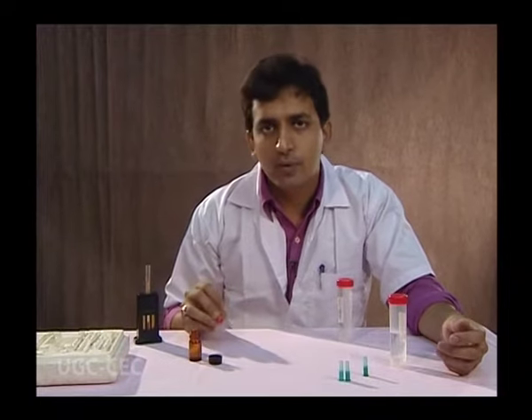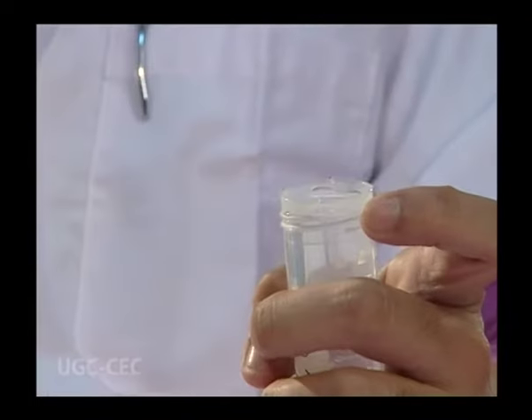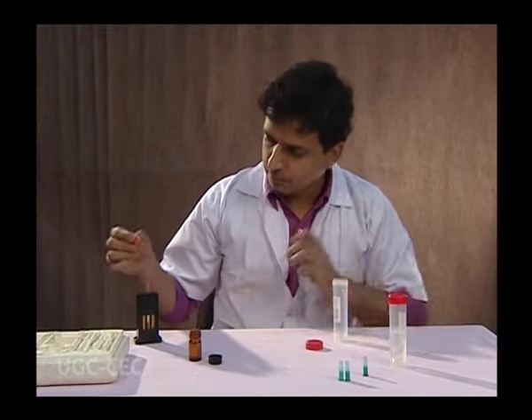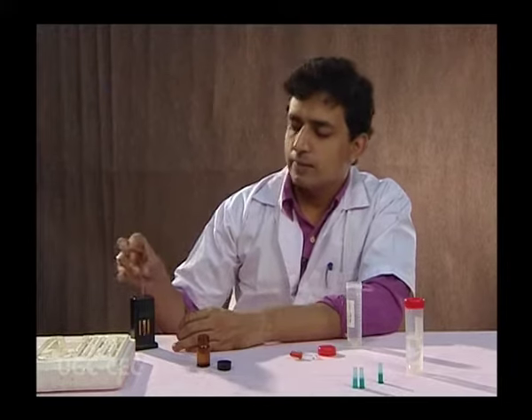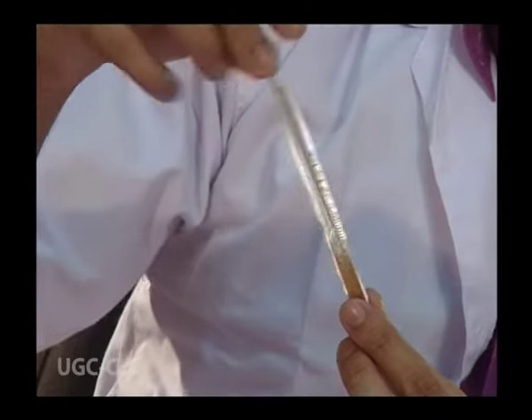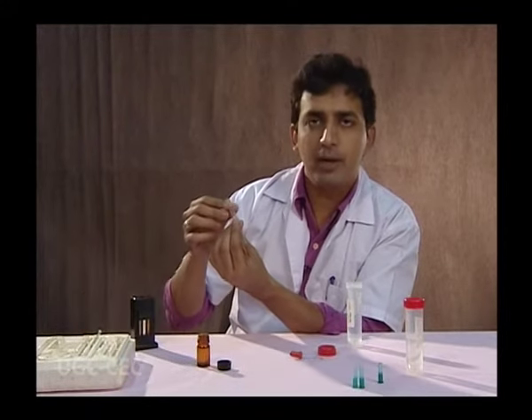Now we will dilute the blood to the extent that it produces a similar brown color as observed in the comparator box. For this, we take distilled water and add it drop by drop to the dilution tube. After adding two or three drops, take the stirrer and mix the two solutions properly, then observe again.